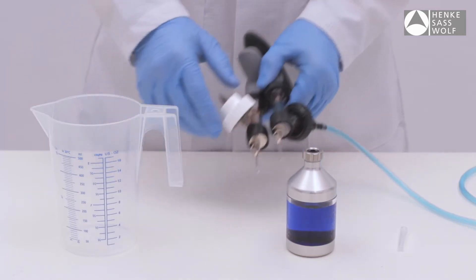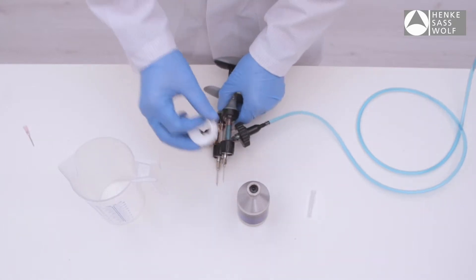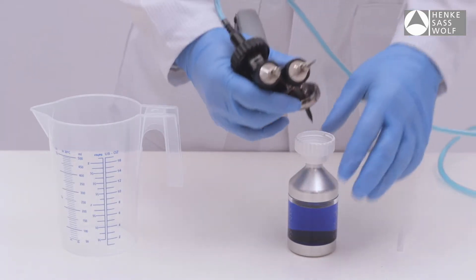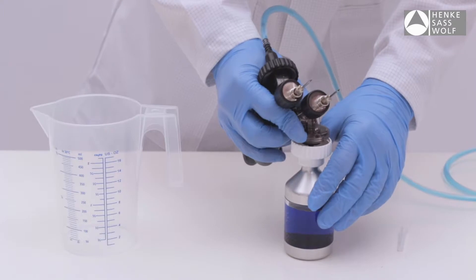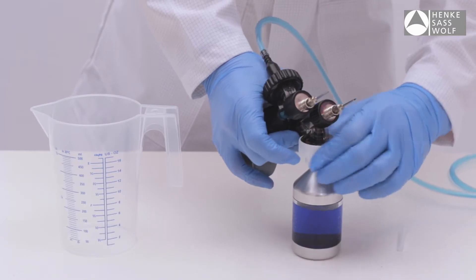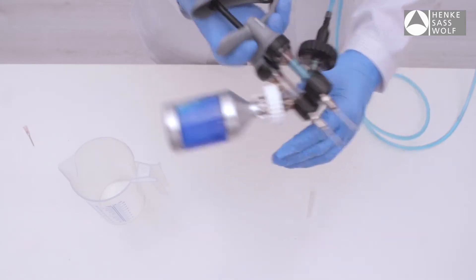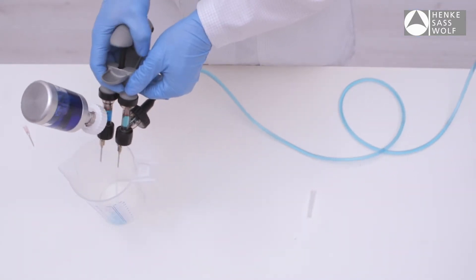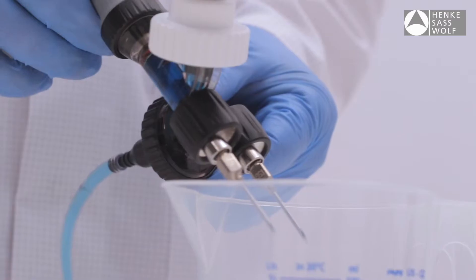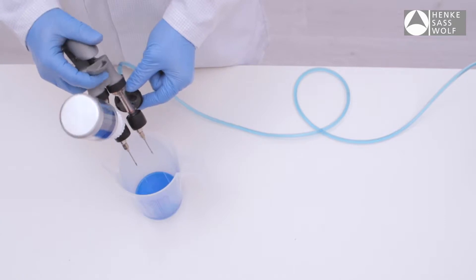Select the corresponding collar size to fit your bottle and guide the spike into the pilot hole in the center of the bottle. Turn the bottle until the collar fits securely. Hold the Eco-Matic at a slight incline, taking care that the spike is below the liquid to avoid sucking air into the barrel. Squeeze the adjustable handle and release quickly to draw fluid into the barrel until no air bubbles remain.